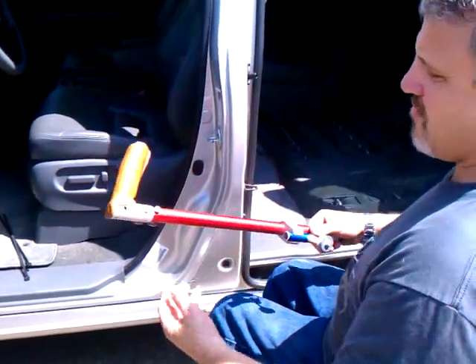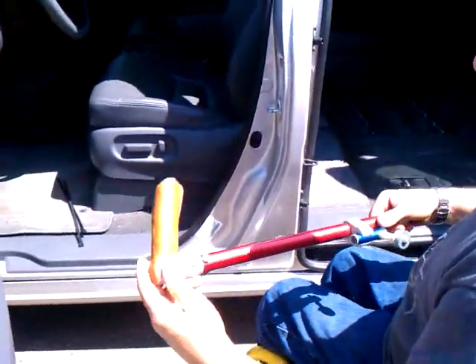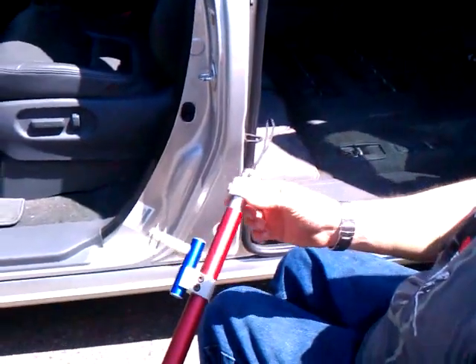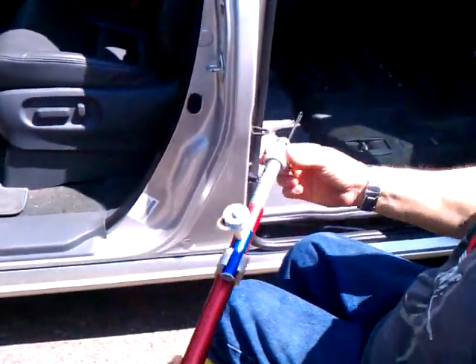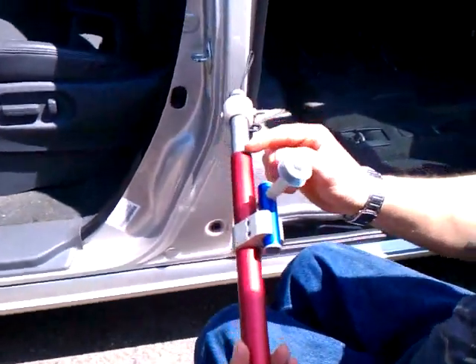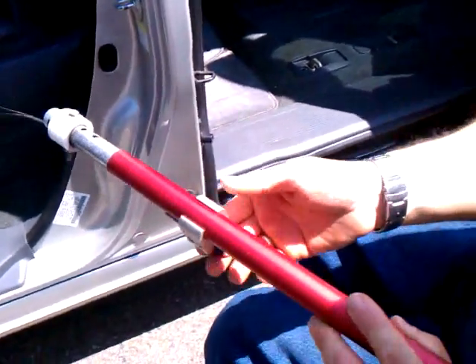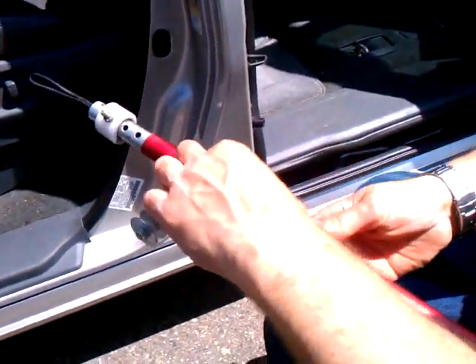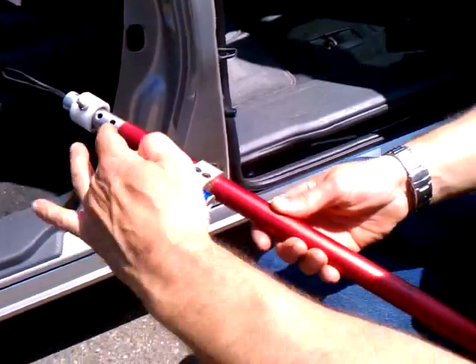Now, this is an outrigger — a leather retention plastic washer to prevent the aluminum from mushrooming, and a wheelchair clamp. This can be positioned anywhere up and down here, and this can go at any angle.